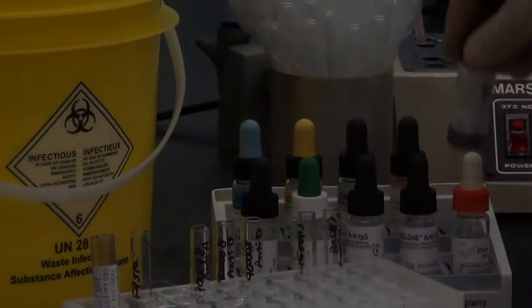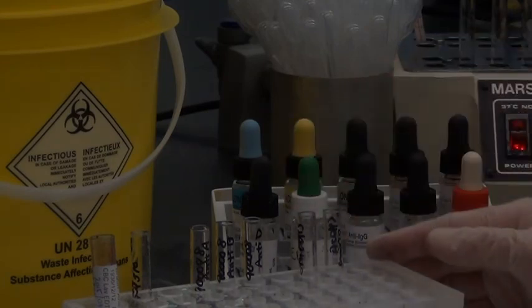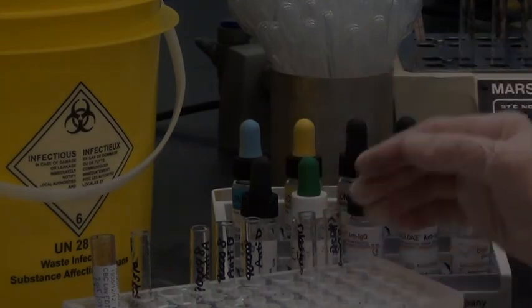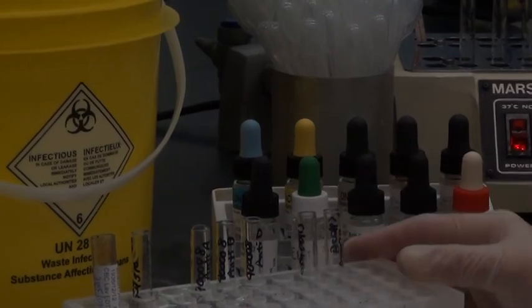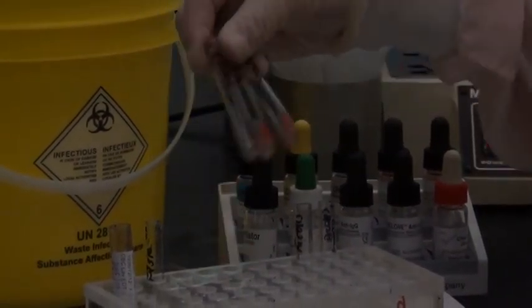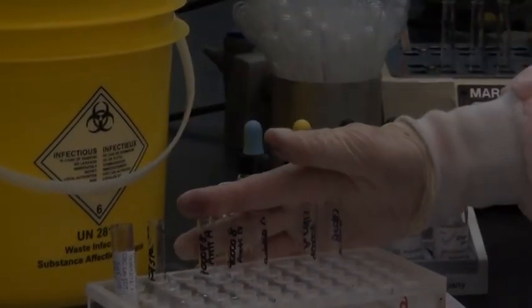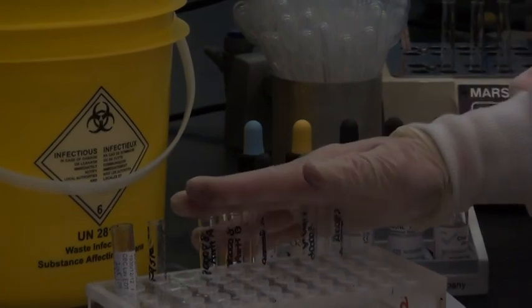Using good pipetting technique, vertical pipettes, and held above the level of the test tube, so that you don't accidentally contaminate the dropper when you touch the test tubes. There you go, these are ready to be given a little gentle waggle and placed into the centrifuge 15-second spin to look for agglutination.